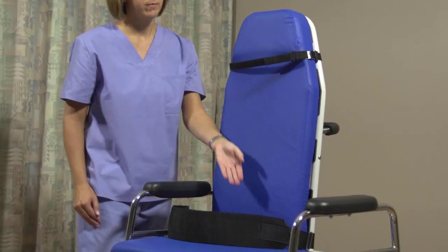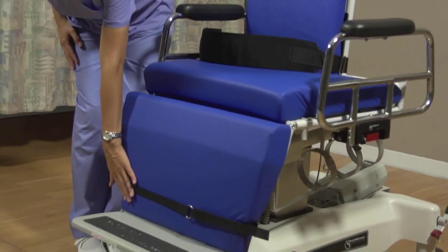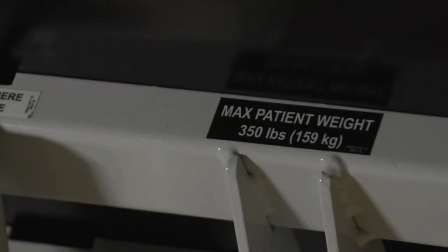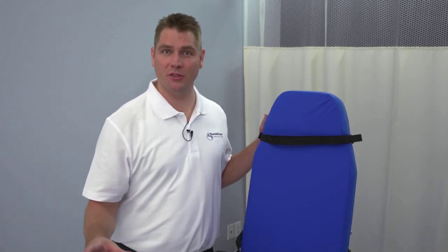There are head, wide torso, and leg belts to keep the patient secure. The chair will handle patients up to 350 pounds in weight. The TMM3's 90-degree rotating seat lets you easily take both lateral and anterior-posterior images, which can mean less time for every swallow study procedure.